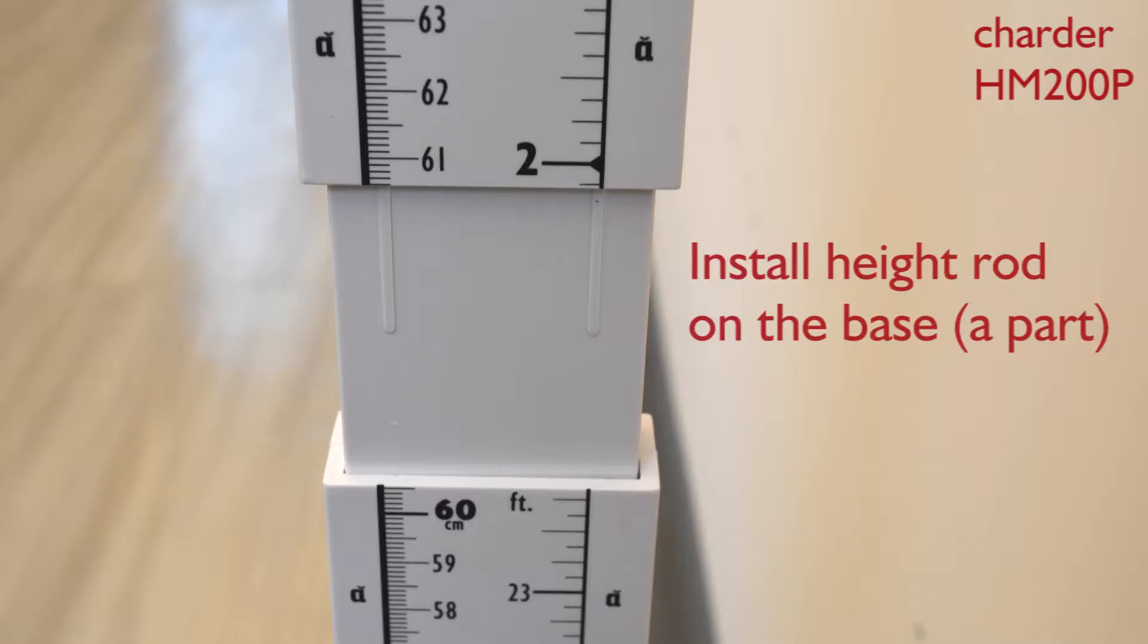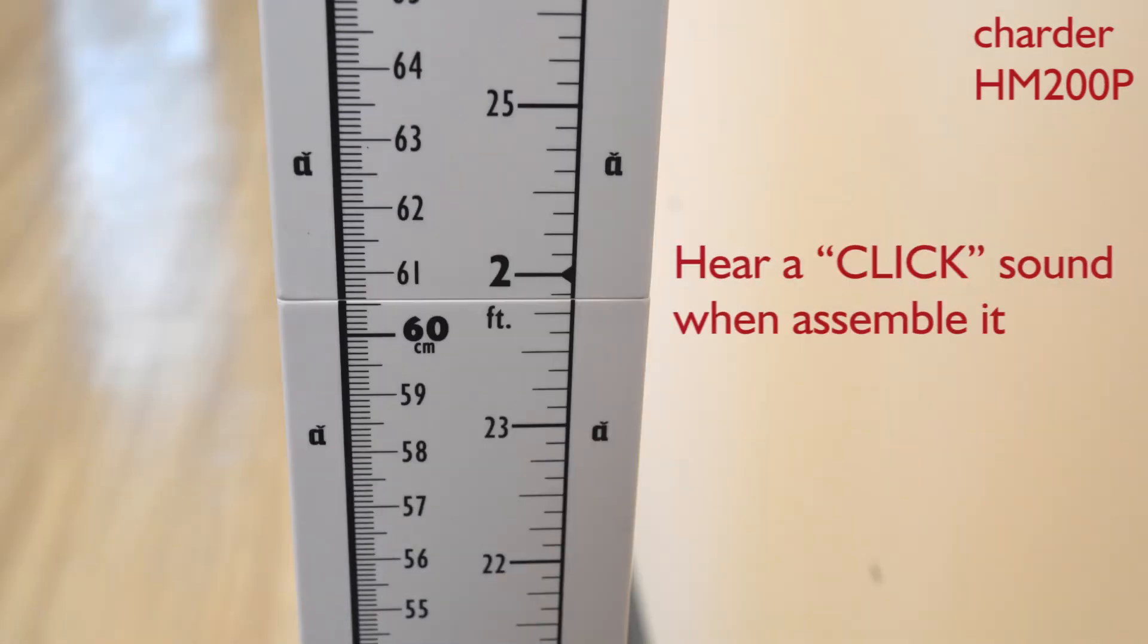Assemble the rod A and A together. It's well connected if hearing a click sound.